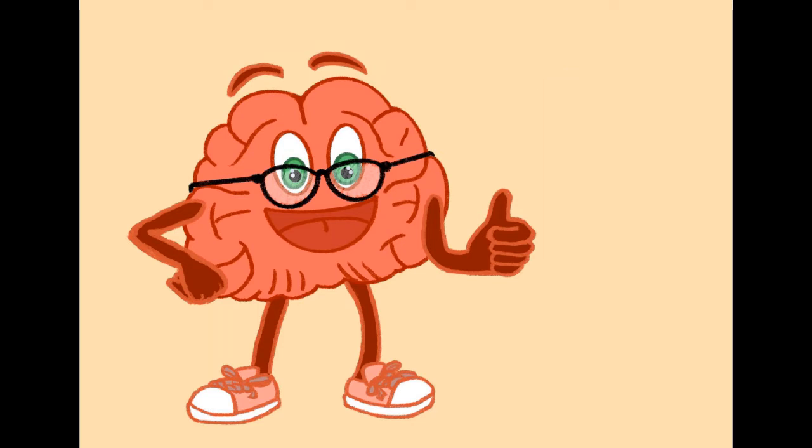There are various techniques that help brain researchers to look at your brain. Some use big, strong magnets.